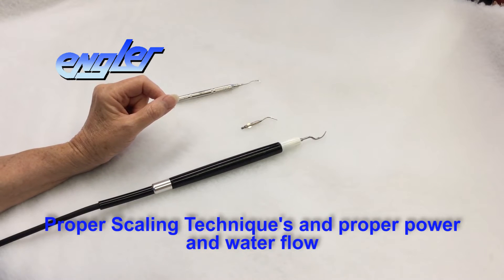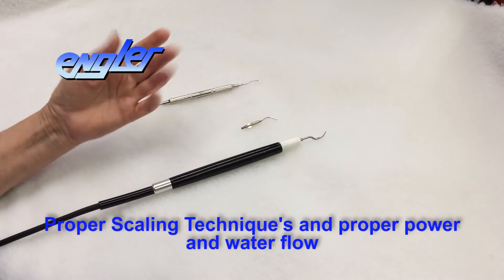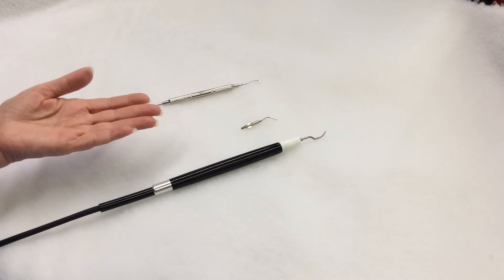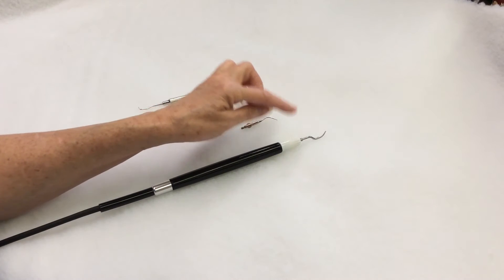Every once in a while we get a phone call about a scaling tip getting very hot and burning the fingers and the gums. I will then ask, is the handpiece getting hot? The answer comes back, no, only the scaling tip.